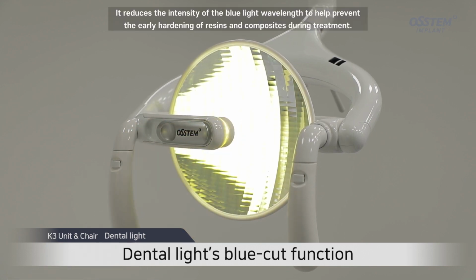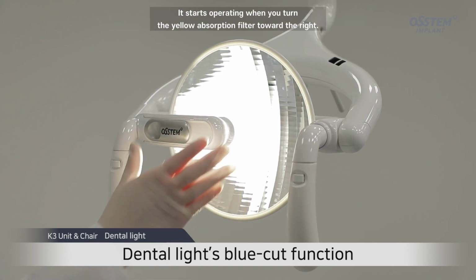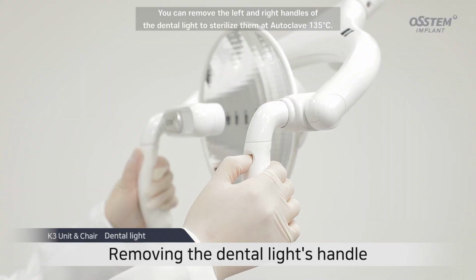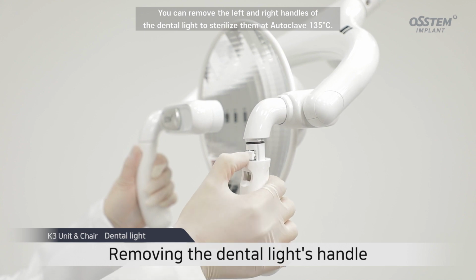It reduces the intensity of the blue light wavelength to help prevent the early hardening of resins and composites during treatment. It starts operating when you turn the yellow absorption filter toward the right. You can remove the left and right handles of the dental light to sterilize them in an autoclave at 135 degrees Celsius.